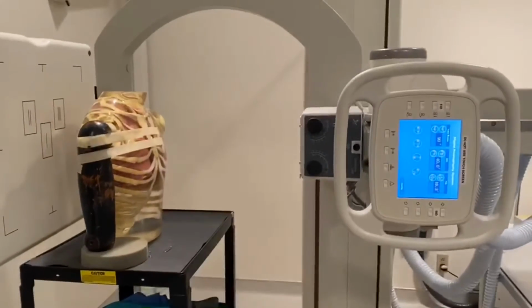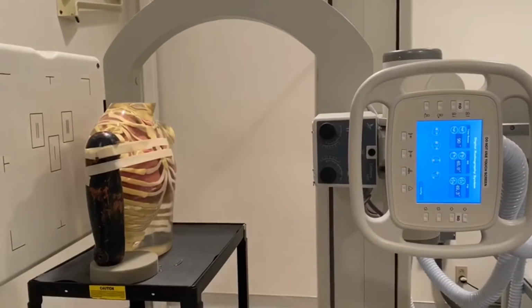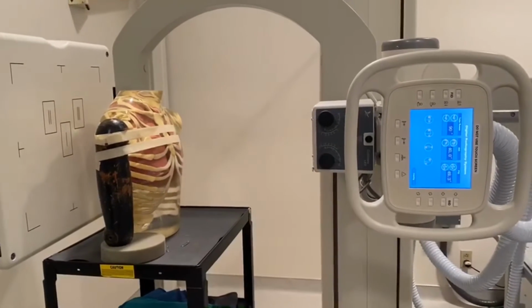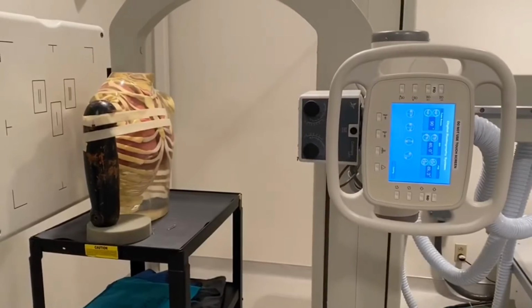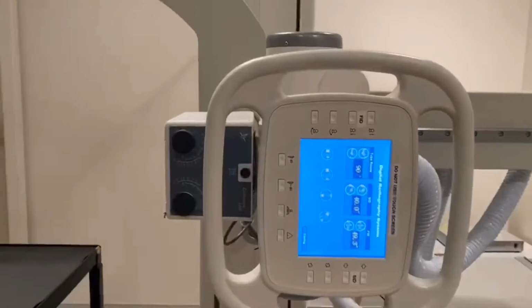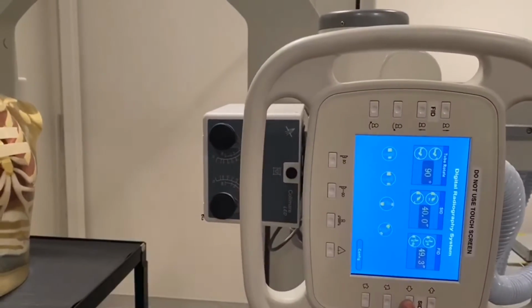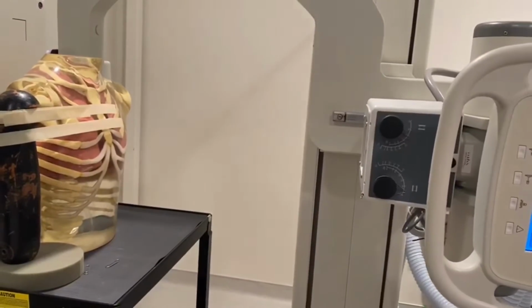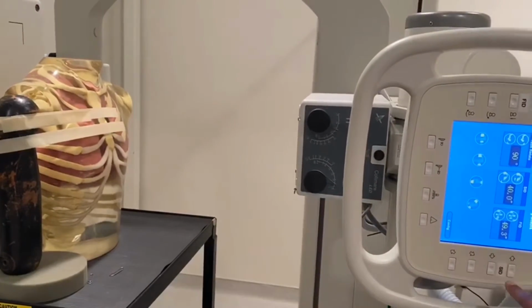So this is your room setup for objective 1. We've flipped the tube over to upright. You won't be responsible for doing that. When you come in here, it'll already be set up that way. Your SID may be a little bit different, and also your FID. So here, your SID is now going to take your tube and either bring it further away from your patient, or a little bit closer to your patient. So you'll be responsible for making sure you're still at a 40-inch SID.